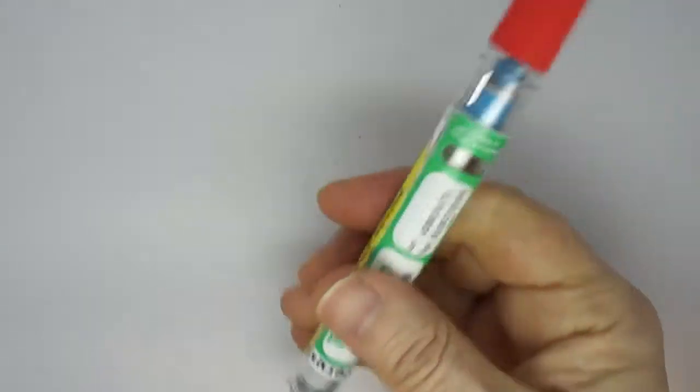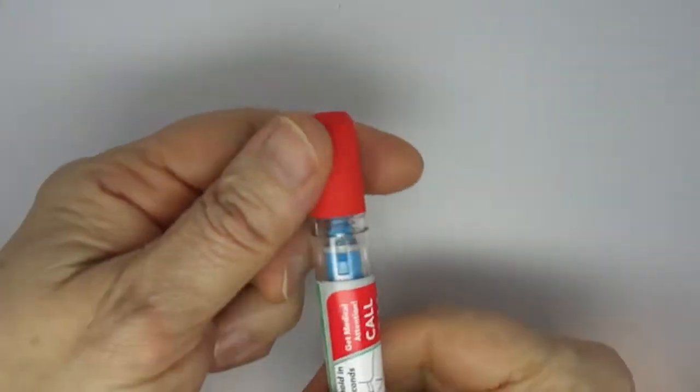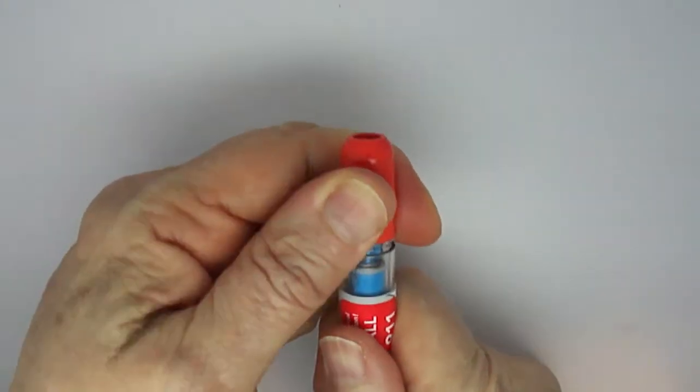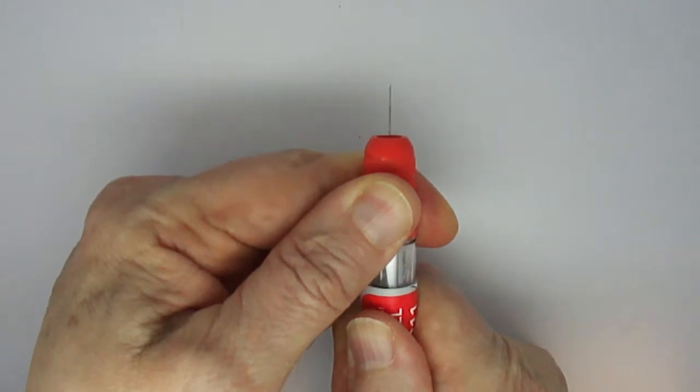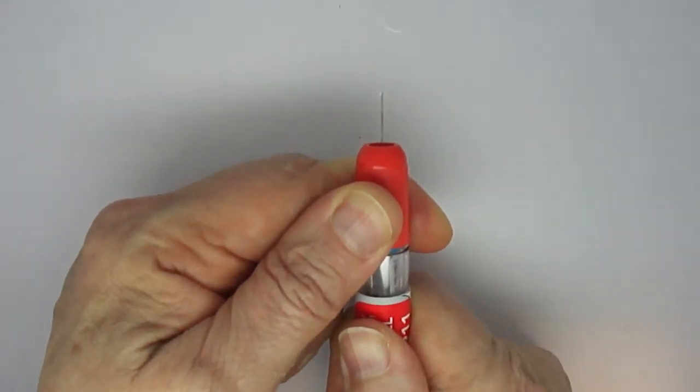Okay, so we take off cap number one, cap number two, and then we're going to put this up against our thigh and then fire it. And you hold these devices for ten seconds.